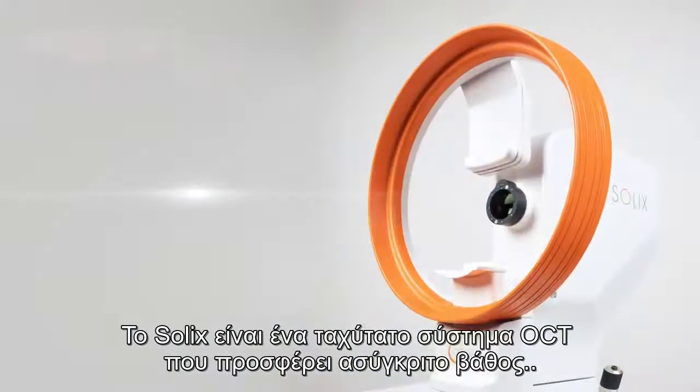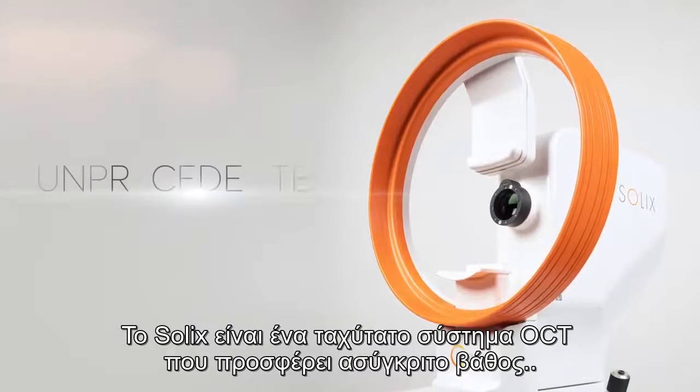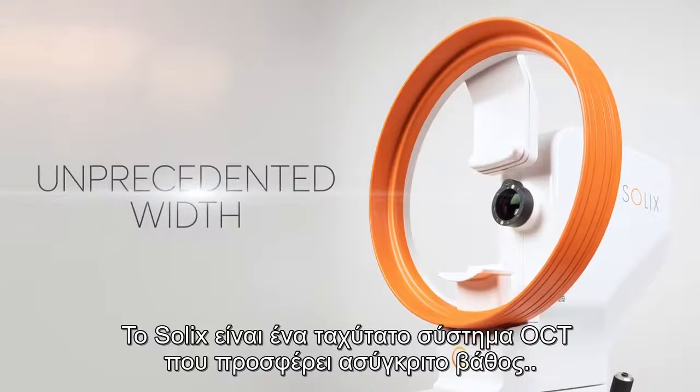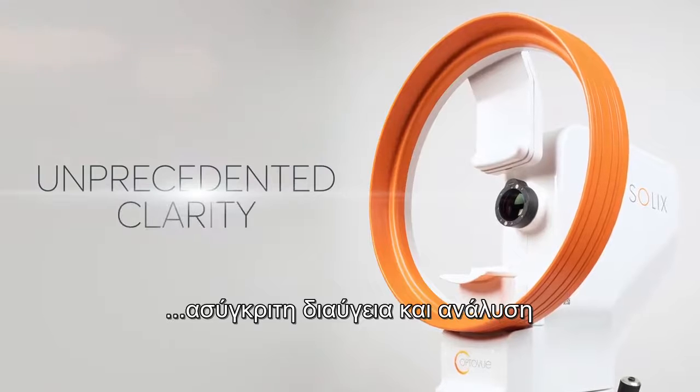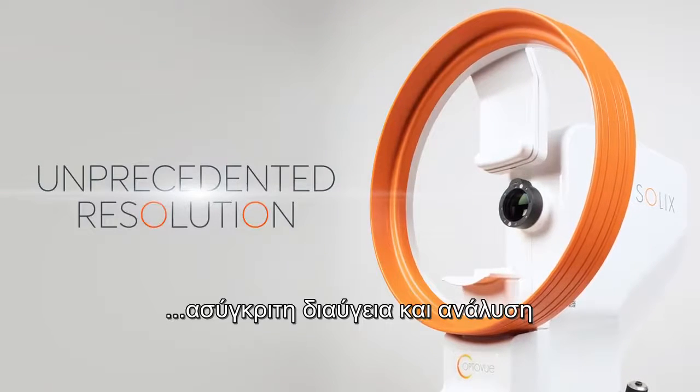Solix's ultra-high speed OCT scanning provides unprecedented width, depth, clarity, and resolution.